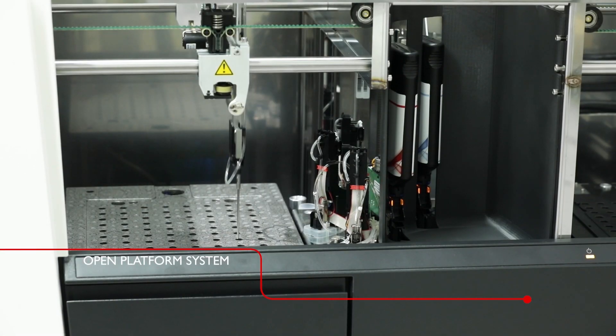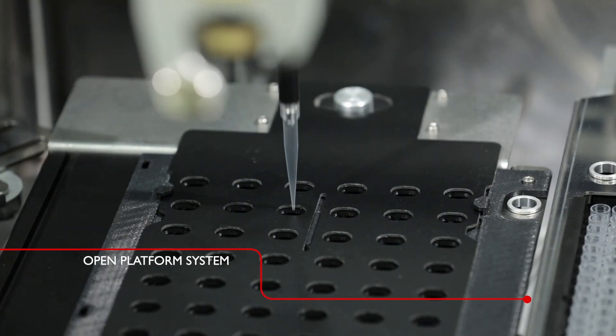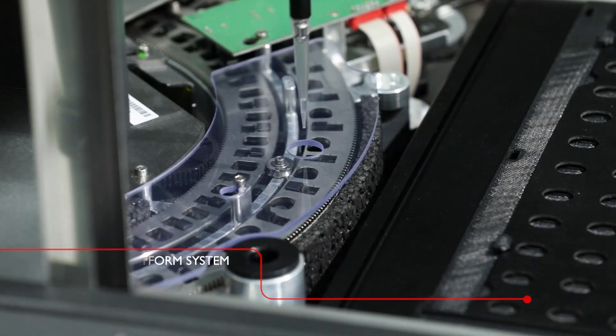The CLIA analyzer is an open platform system that handles tests from various providers and is able to combine a wide variety of assay designs.